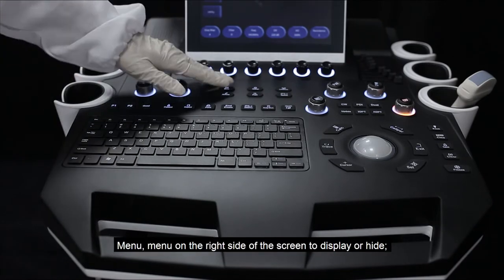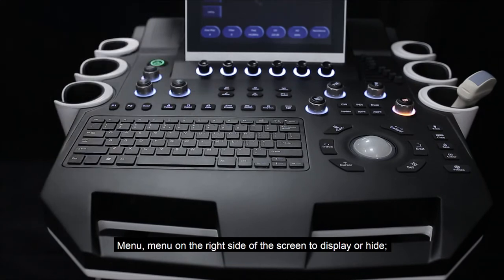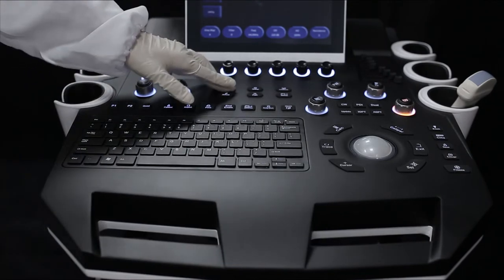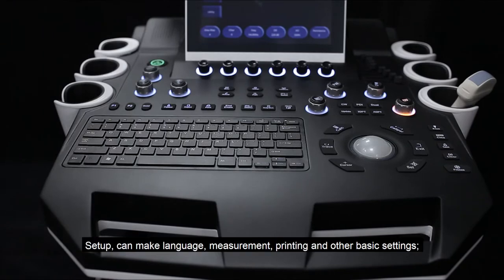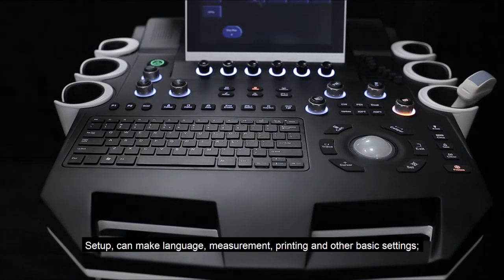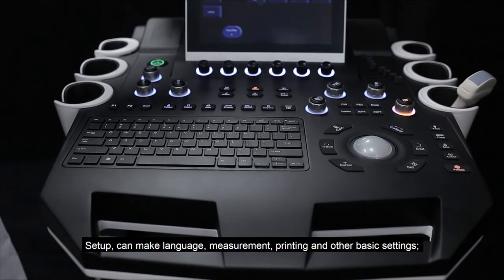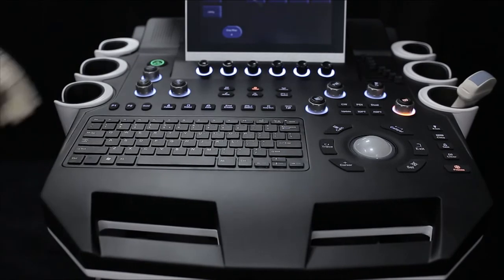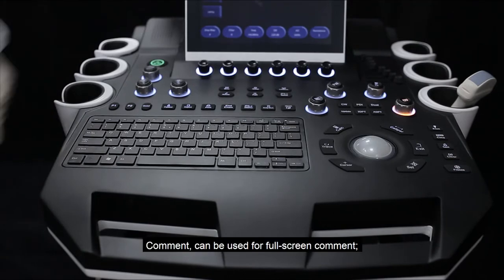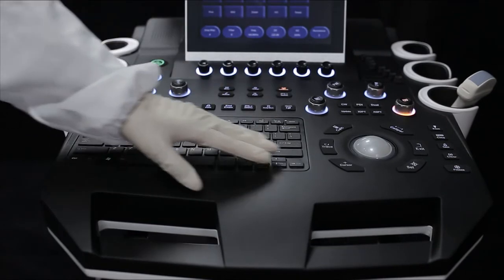The Menu button on the right side of the screen can display or hide the menu. Setup can be used to configure language, measurement, printing, and other basic settings. Comment can be used for full screen annotation.